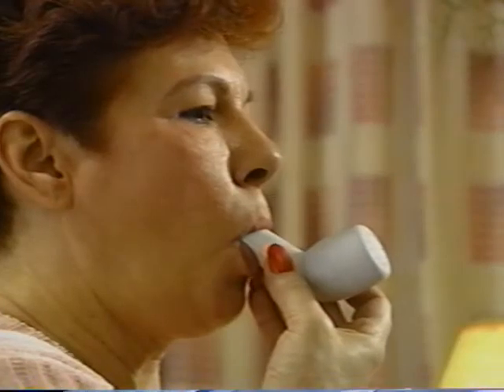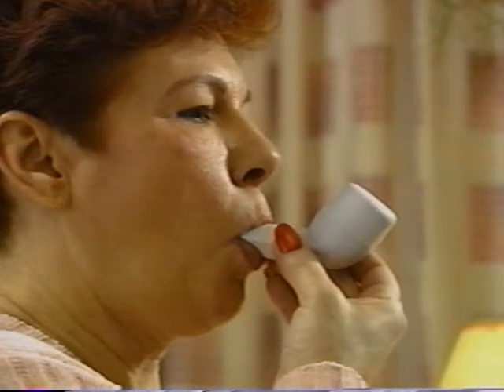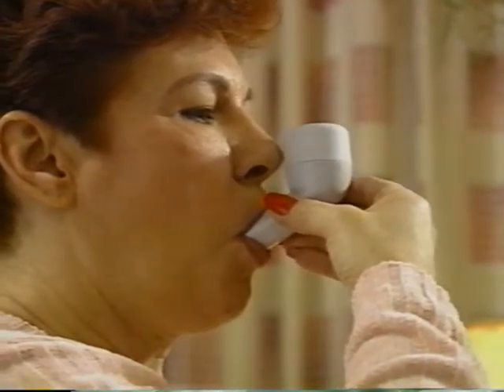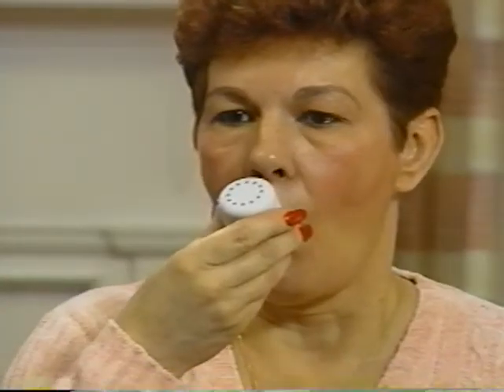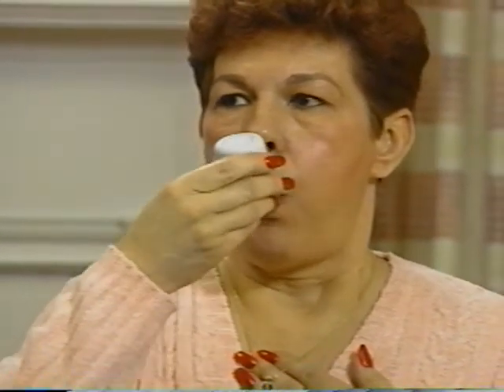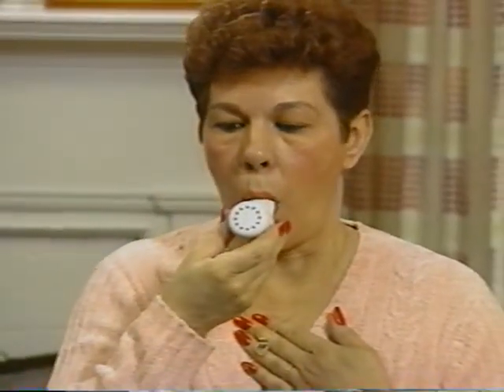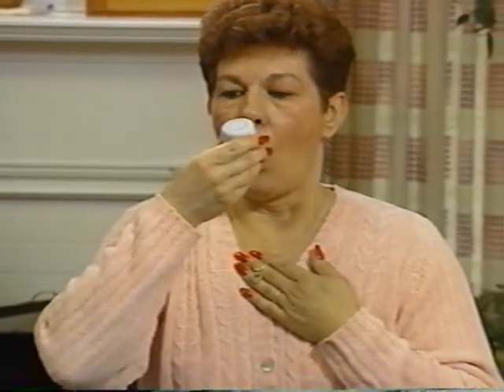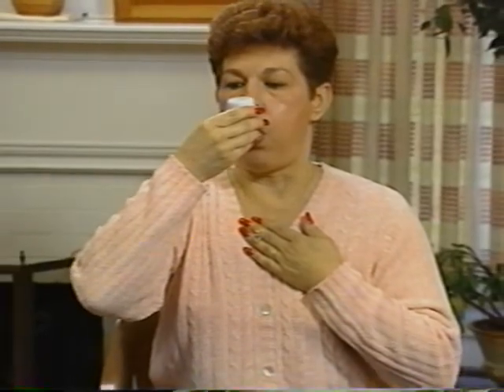The angle at which you hold the flutter is very important. Holding it with the stem in line with the floor places the cone at a slight angle and ensures that the ball not only bounces or flutters when you breathe out, but also rolls. While performing flutter therapy, experiment by tilting the flutter upward and downward, because you may get a greater fluttering sensation in your chest with the stem in a tilt position than you do with the stem in line with the floor. For best results, use the angle that gives you the strongest fluttering sensation.